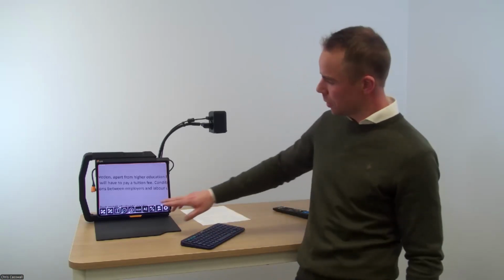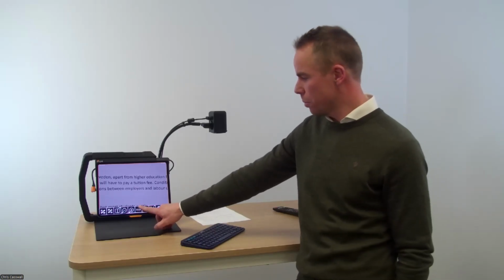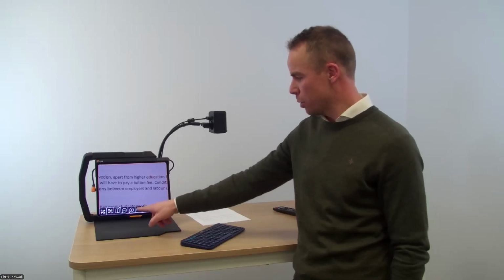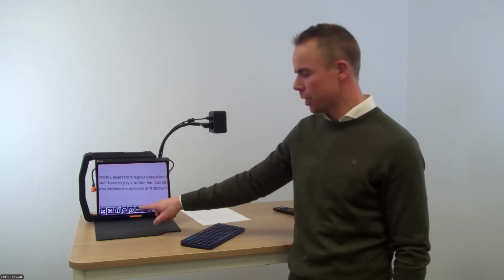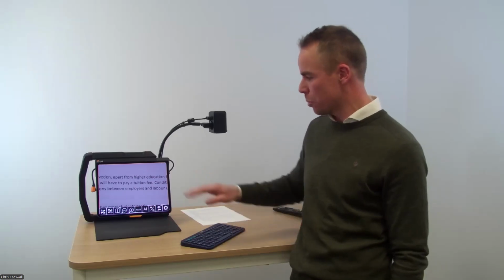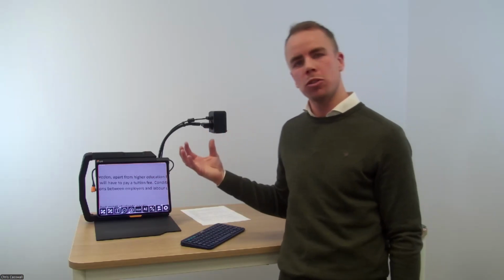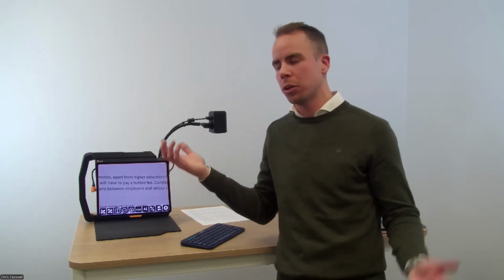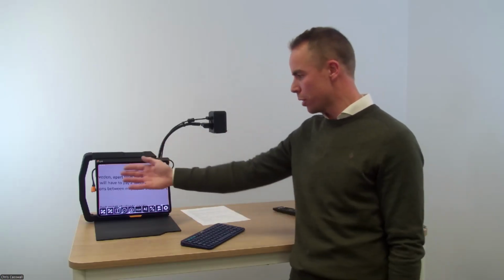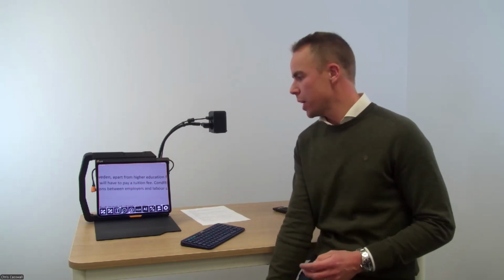I'm not zoomed in, so I don't think you will see this, but if I do, so you remember there's an icon saying OCR. It would have been F4 on my keyboard as the short command. When I do that, I scan the text and it will be read out loud to me, so I can follow by either closing my eyes and listening, or I try to follow at the same time as it's reading to me what's on the screen.